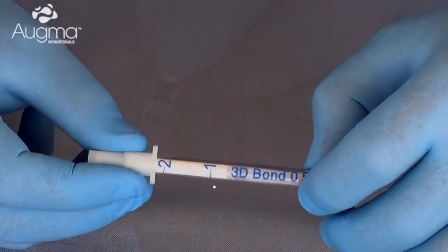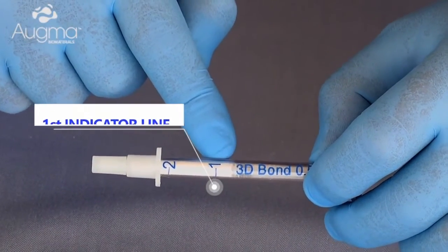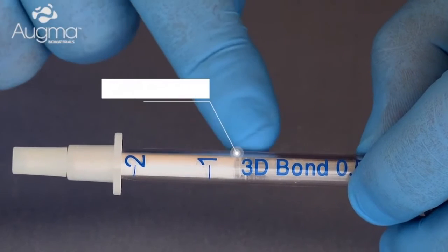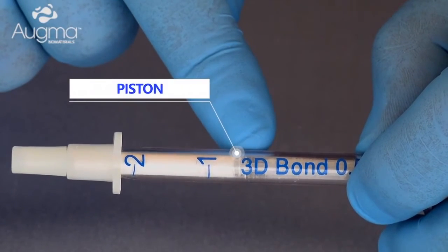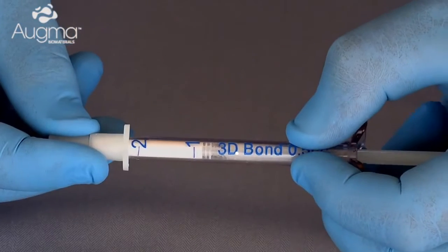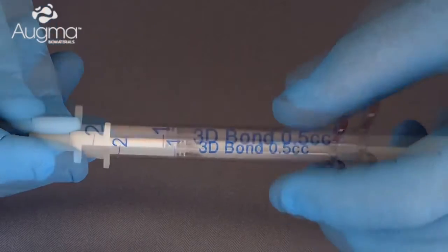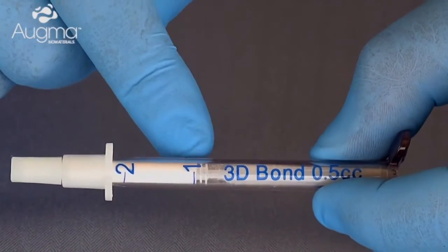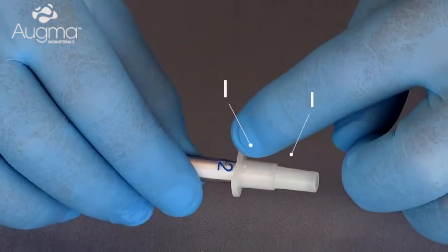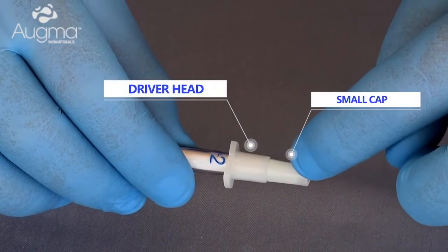Now we take the 3D-Bond driver in hand. As you can see, it has line marks on it and a piston. We advance the piston until it reaches line number one. The 3D-Bond driver also contains a driver head and a small cap.